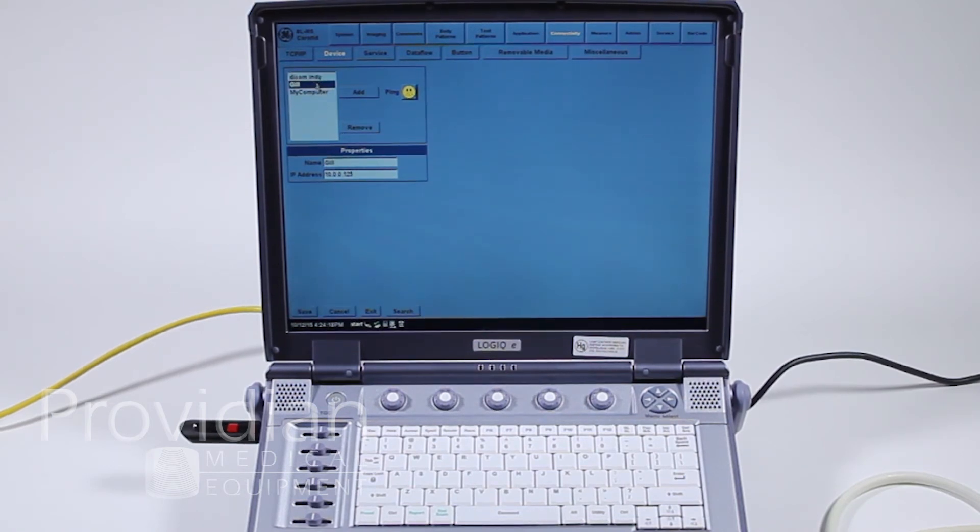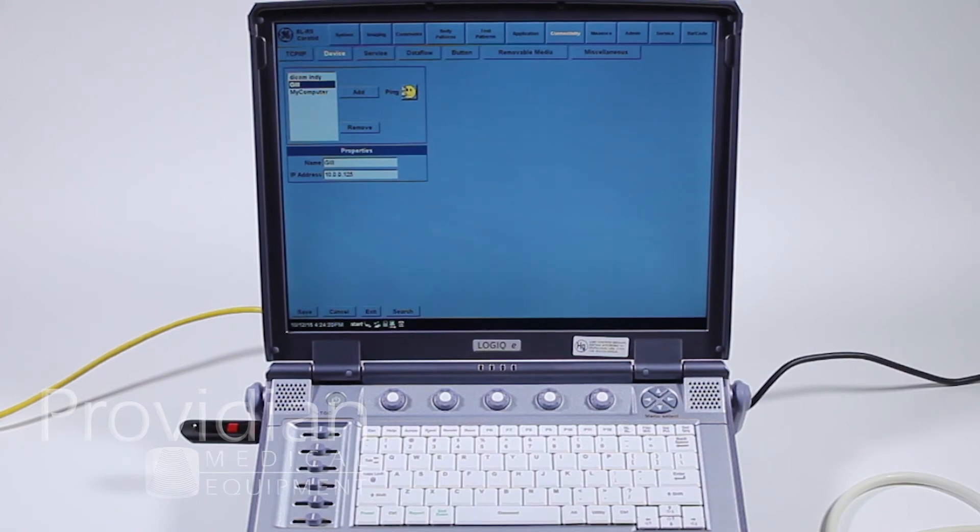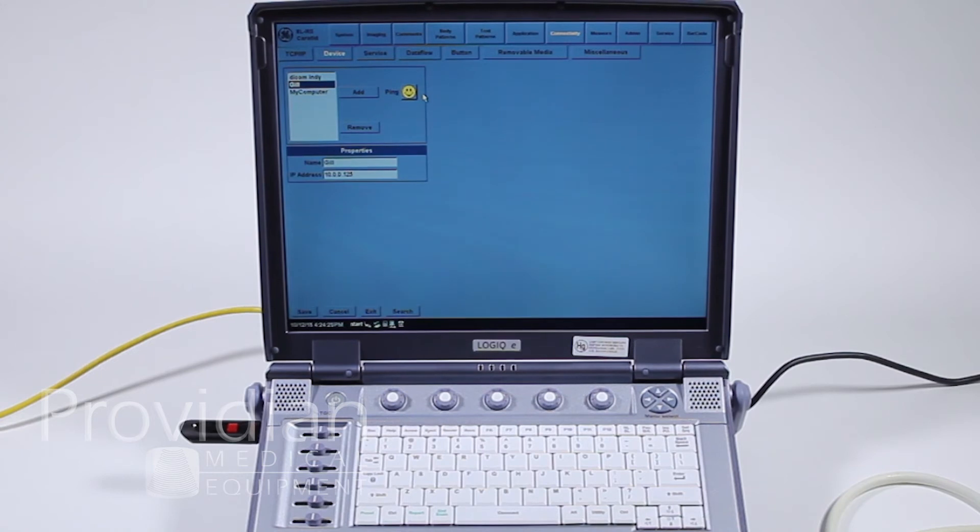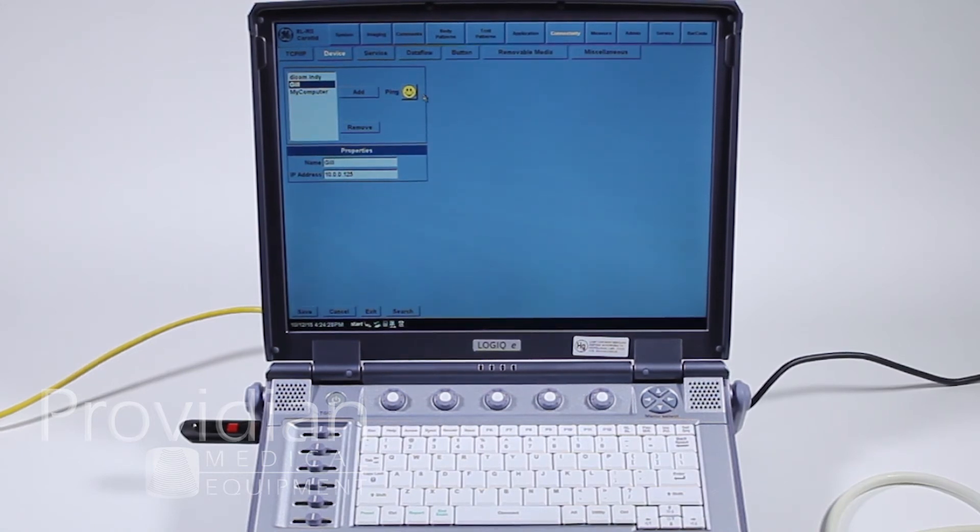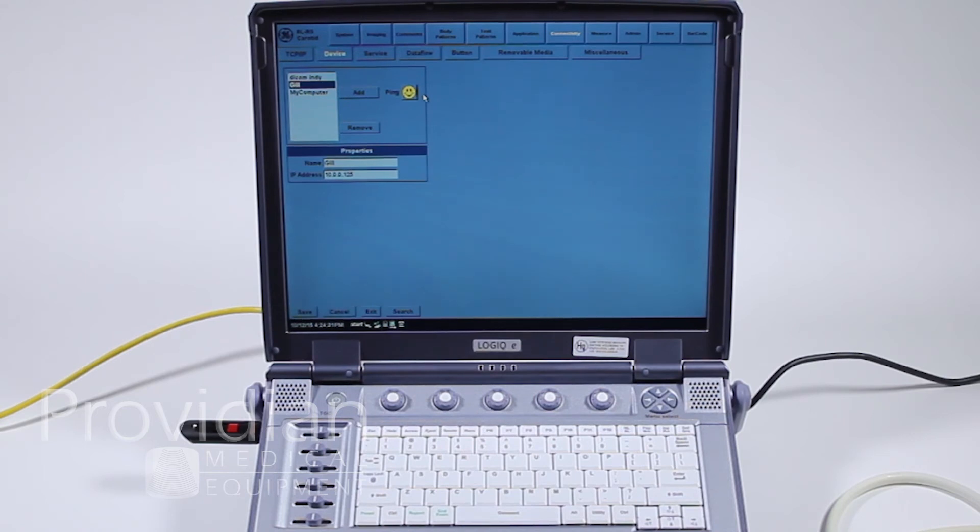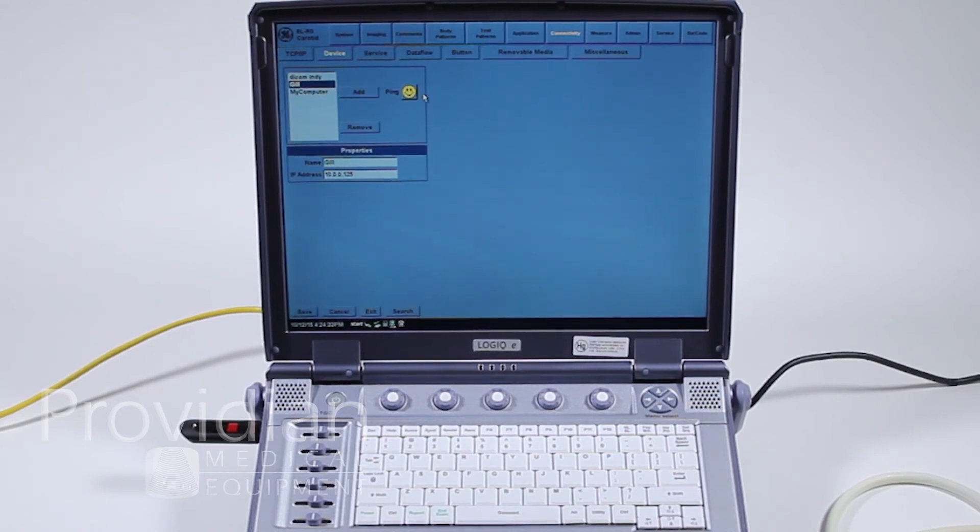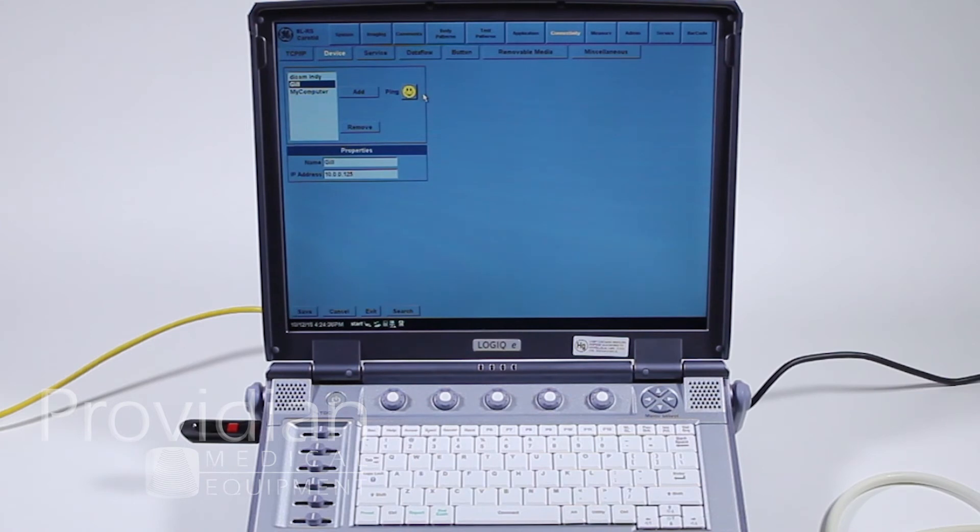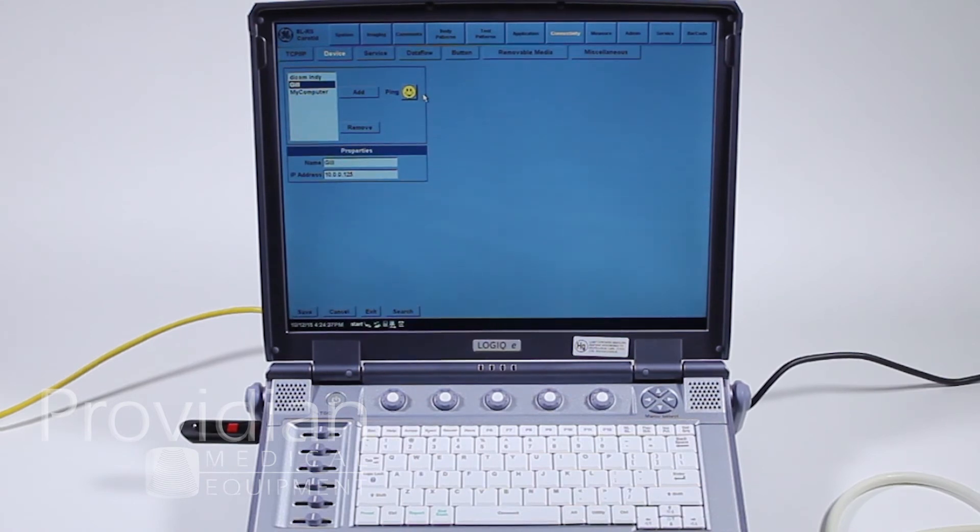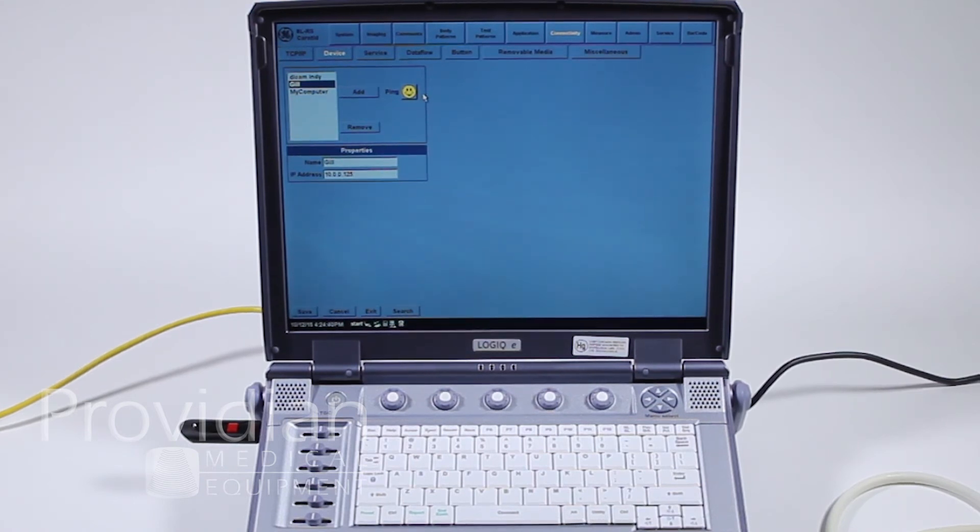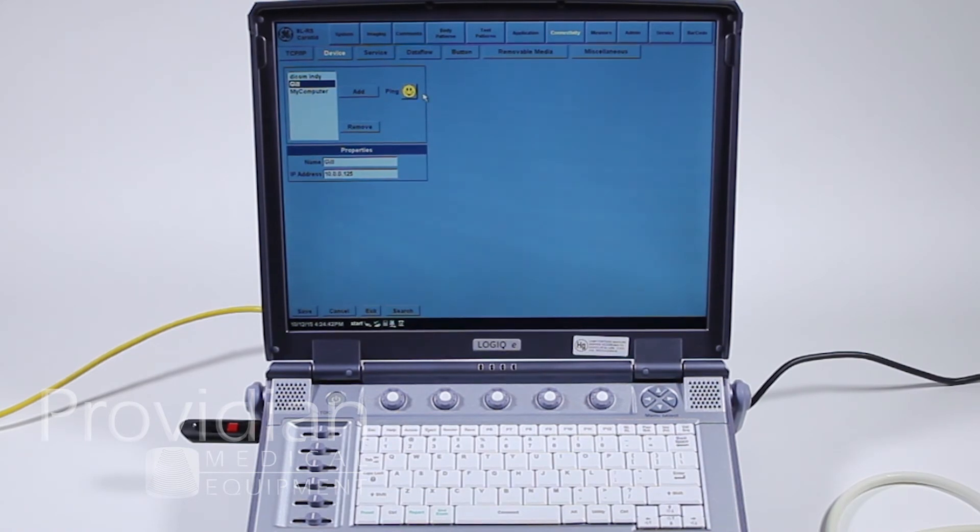On my own DICOM server, I can go ahead, click ping, and I've got a smiley face. This simply means that it was able to communicate with the DICOM server. It basically sent a message saying, are you there? It said, yes, I'm there, and you get a nice little happy face saying everything's okay. That's the first step, but that does not necessarily mean you'll be able to transfer images, and that's important to note. I get a lot of calls saying they get the smiley face, but images can't go across.